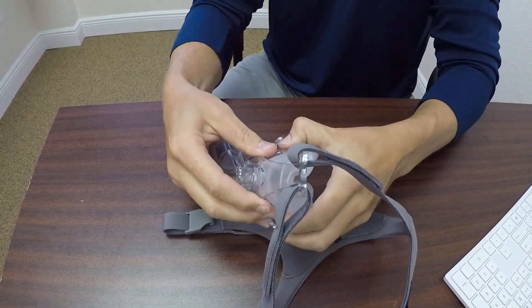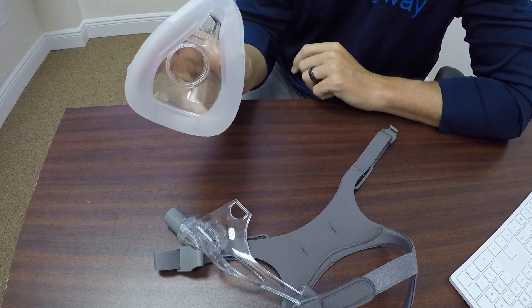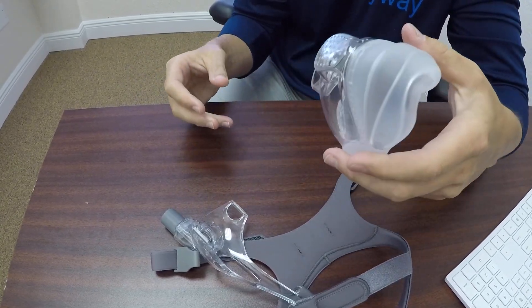As far as maintenance, you obviously want to maintain it just like any other mask. So you pull the cushion loose, which is one of the most important parts to clean. Clean inside and out of it, of course, at least once a week.